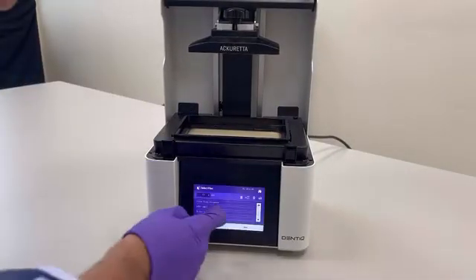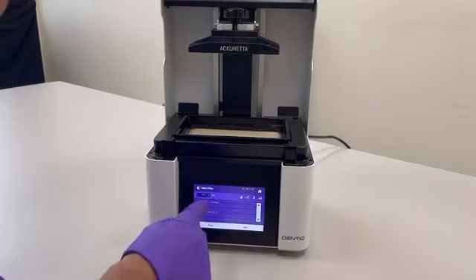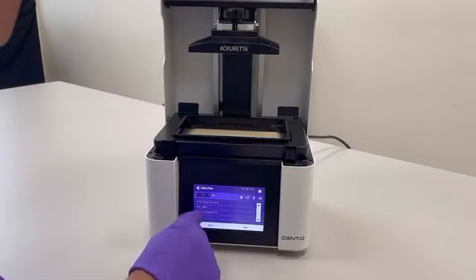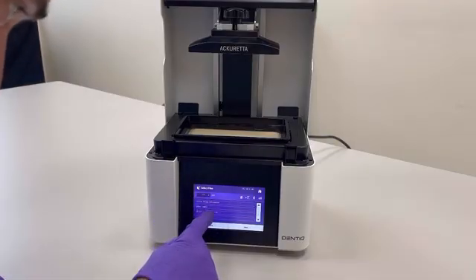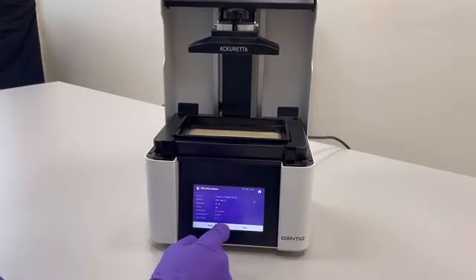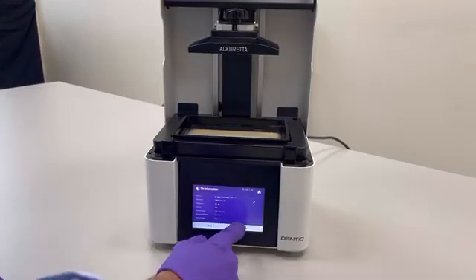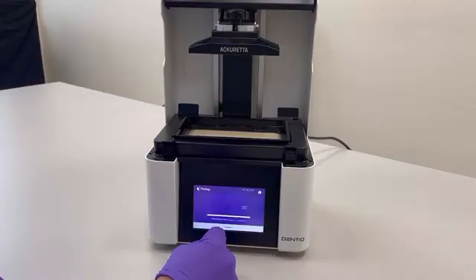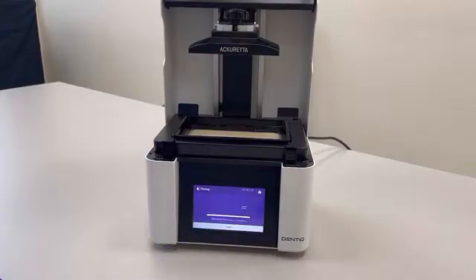I just put the resin inside the vat. Now to print with USB, you just go to print, then you make sure you have USB. Then you choose your ibf file, next, print, yes, and here we go.